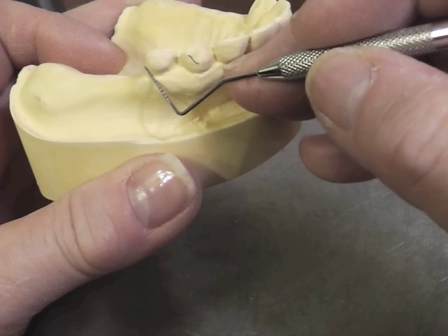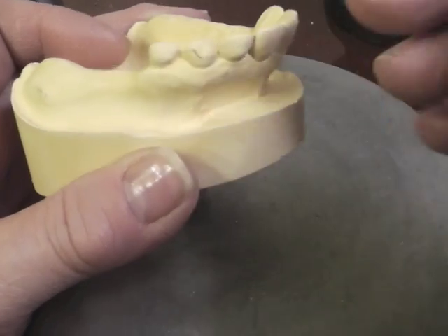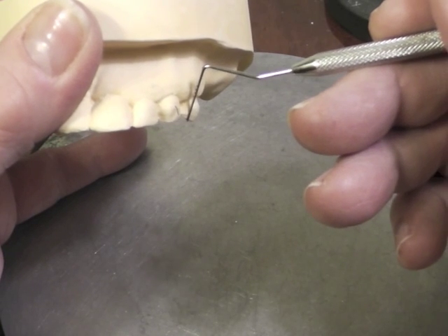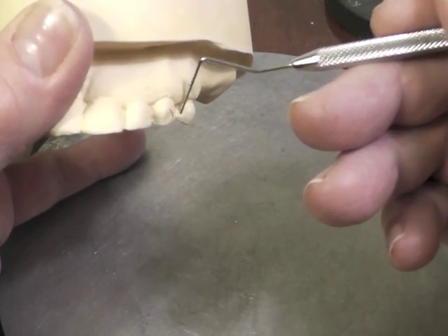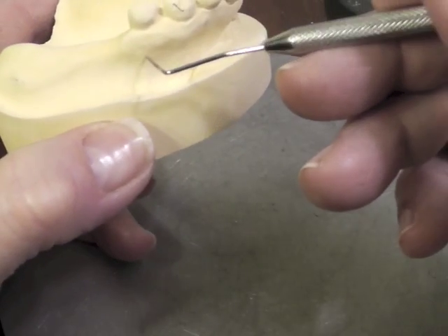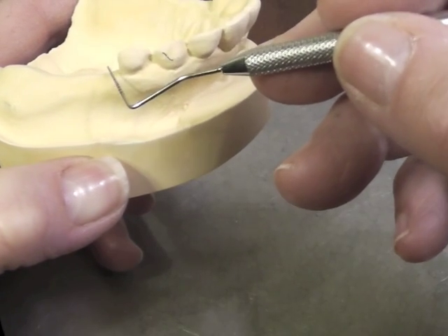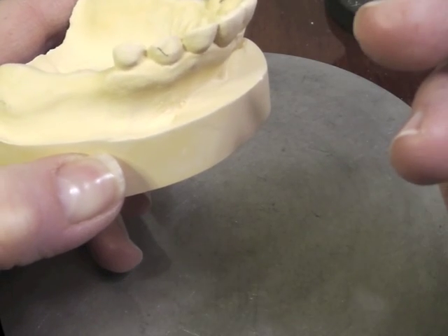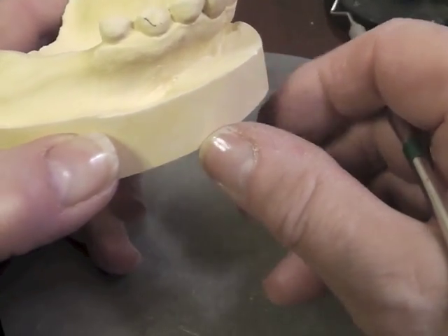If we have a distal facial undercut we could use the reverse circlet clasp coming to the distal facial undercut, but that clasp would not be very attractive as it would originate from the occlusal, come down here, and a lot of the clasp arm would show. If we have an undercut of .01 distal facial, we might consider a modified T-bar clasp, and that about does it for our choices on the premolar.